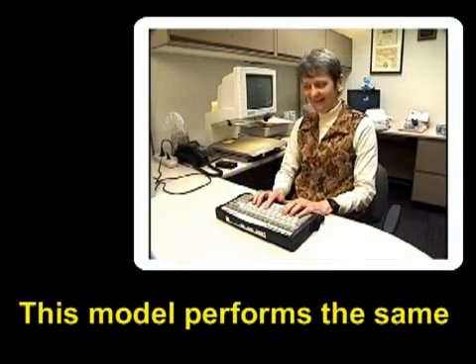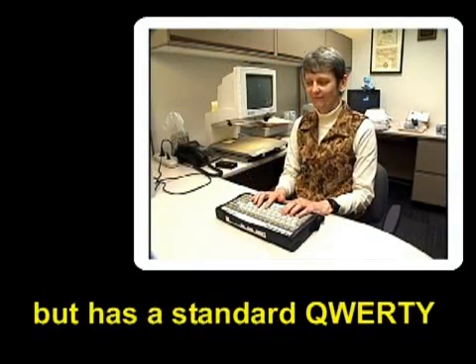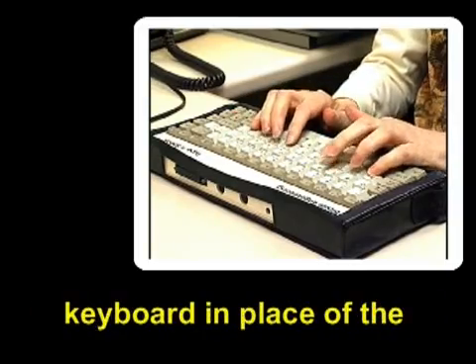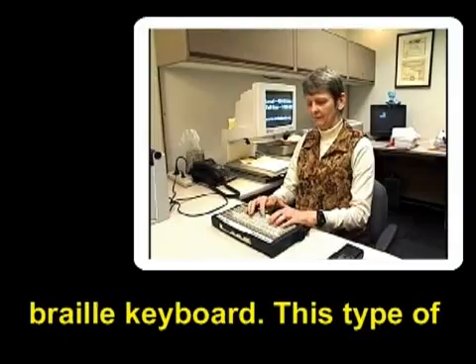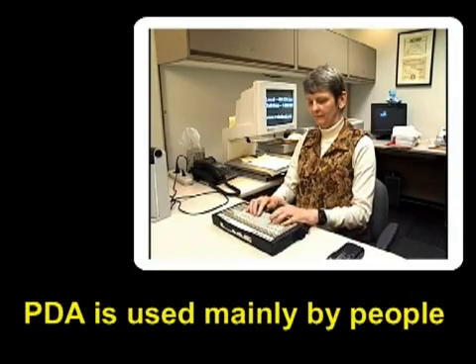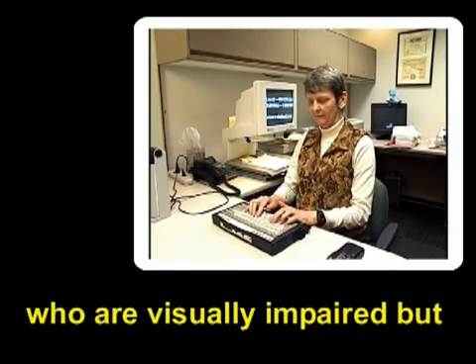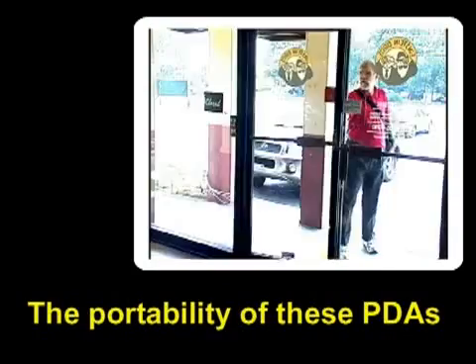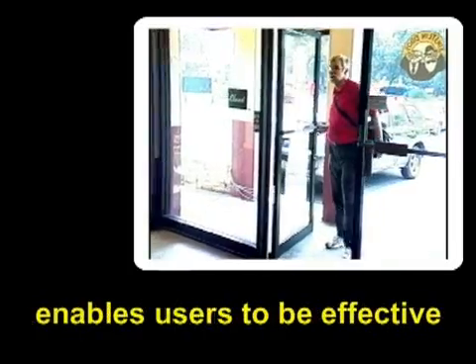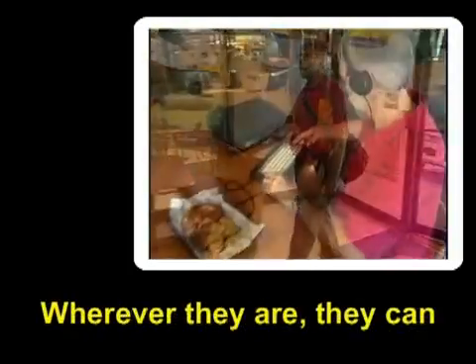This model performs the same functions as the previous one, but has a standard QWERTY keyboard in place of the braille keyboard. This type of PDA is used mainly by people who are visually impaired but not fluent writers of braille. The portability of these PDAs enables users to be effective while out and about.